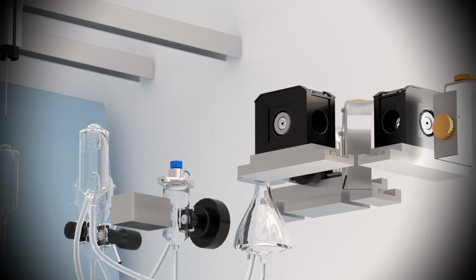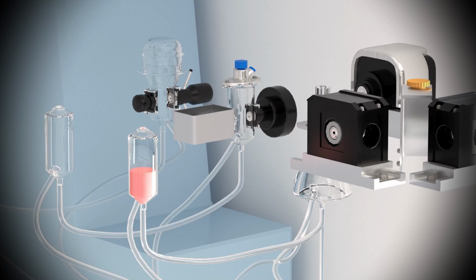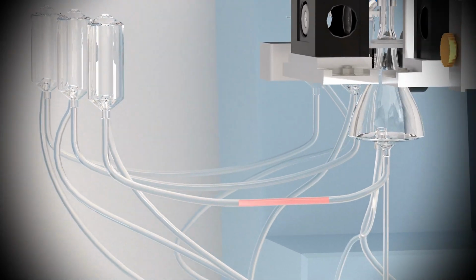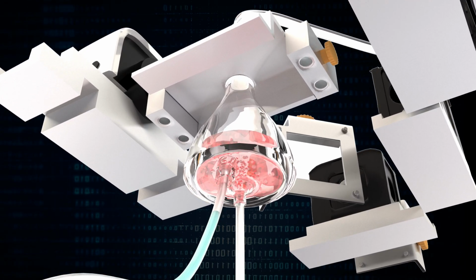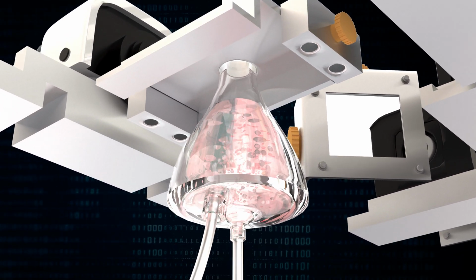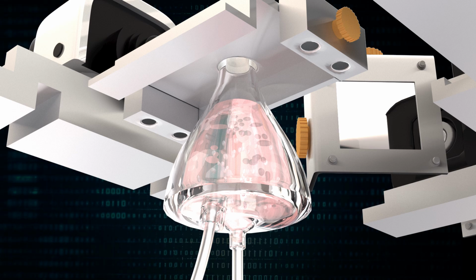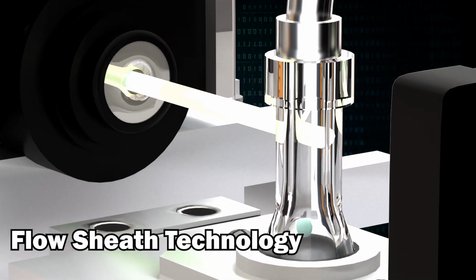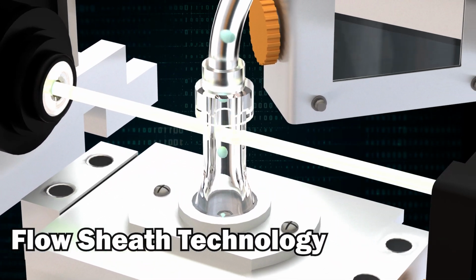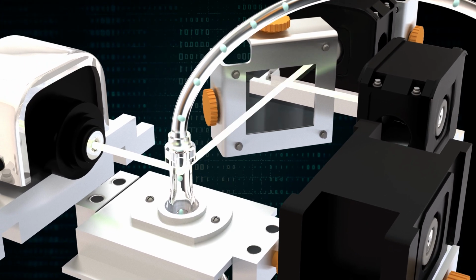The third aliquot of the AWB sample, AL3, is first diluted with diluent and then combined with specific volumes of several different reagents. The first reagent added is a red blood cell lysing reagent to eliminate red blood cells from the fluid. The next reagents added make the white blood cell membranes more permeable and then stain the WBCs with various dyes to make them easier to identify. This prepared dilution is then injected into the flow cell and, using flow sheath technology, the white blood cells pass through the laser light single file.